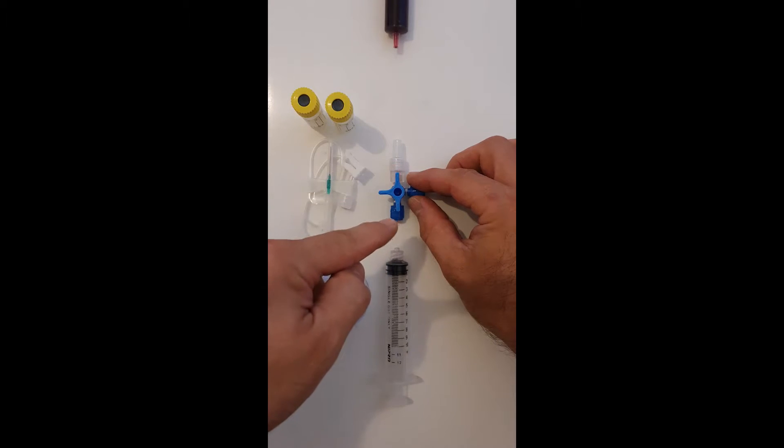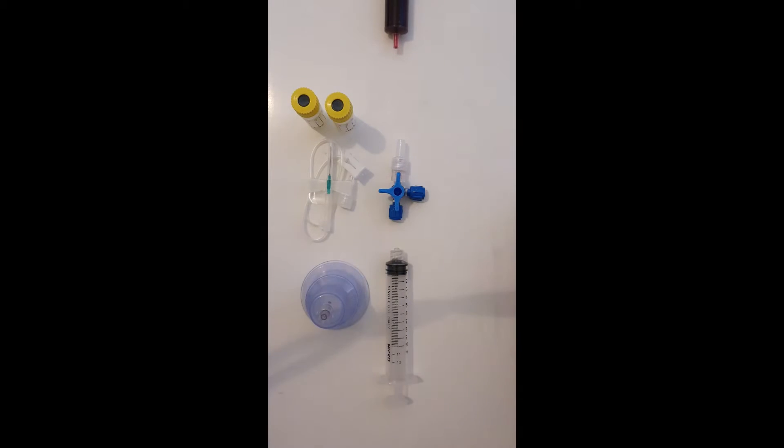First of all, you'll ensure that the stopcock goes from the 6, the 9 and the 12 position when the stopcock is in this layout.